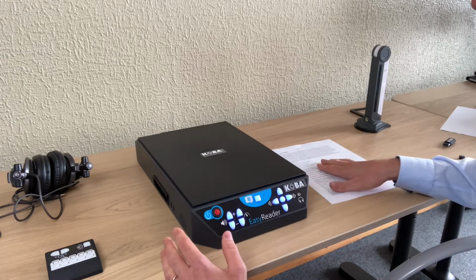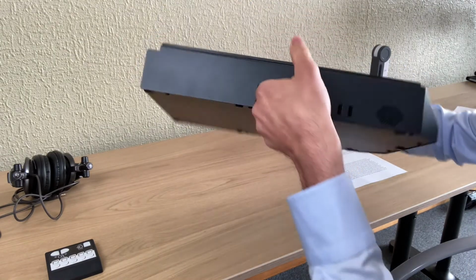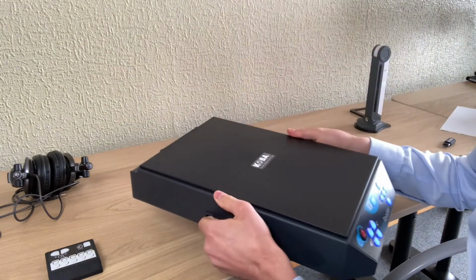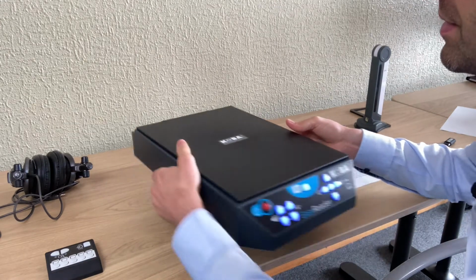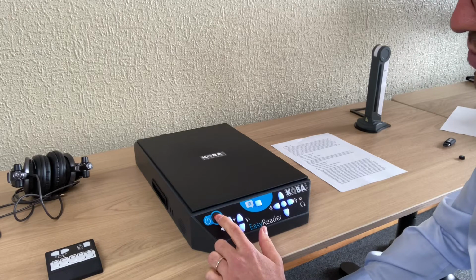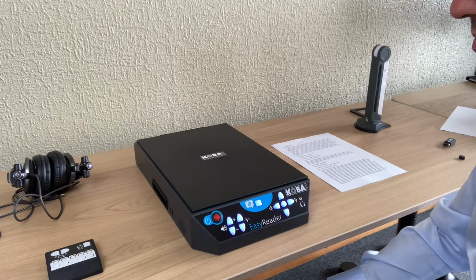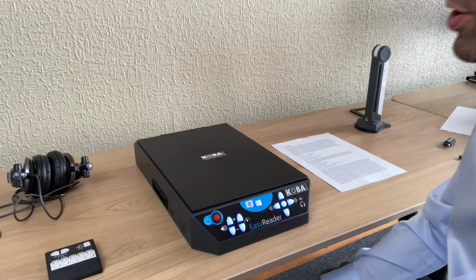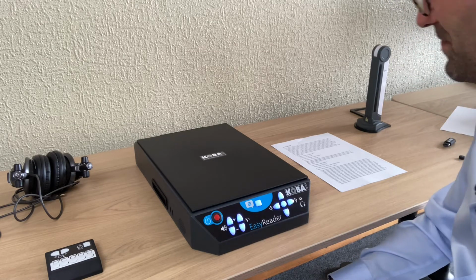The machine is equipped with a battery, so you can see over here, there's no cable. The battery can last for 8 hours, so you have lots of reading fun with the machine. If you'd like to know the status of the battery, you just press the on-off button once. Press again to switch off the reader. The reader is now running on battery. The battery is 99% charged. So I have 99% charge, so I can read almost 8 hours now with the machine.